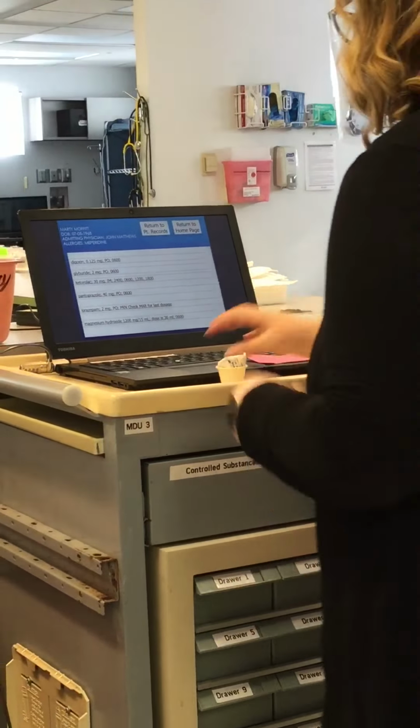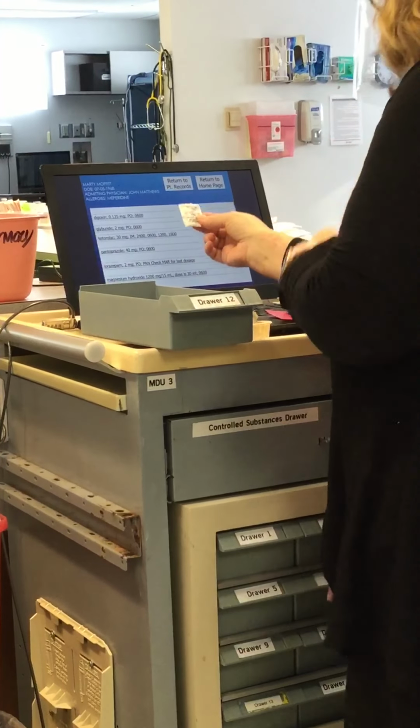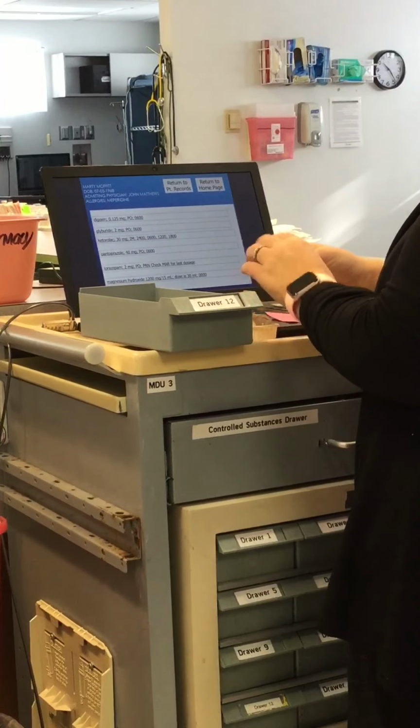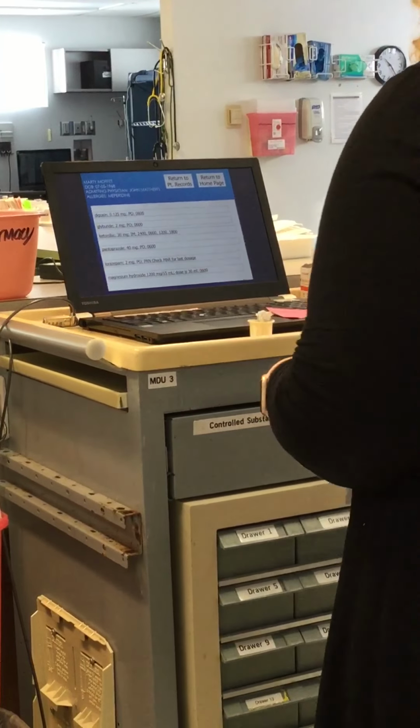Now I'm going to move on to the second one. And it's telling me it's coming from drawer 12. So I'm going to pull out drawer 12, hit the U-turn button and go back. And I need glyburide, so I have potassium back there and I have glyburide up here. Again, be sure to look and make sure that you have the right dose that you need. This says that I need 2 milligrams. It is due at 6. It's not expired. My barcode is good. The reason I want to make sure the barcode is good is so it doesn't give me any issues when I'm trying to scan the med. And I'm going to put that in the cup.